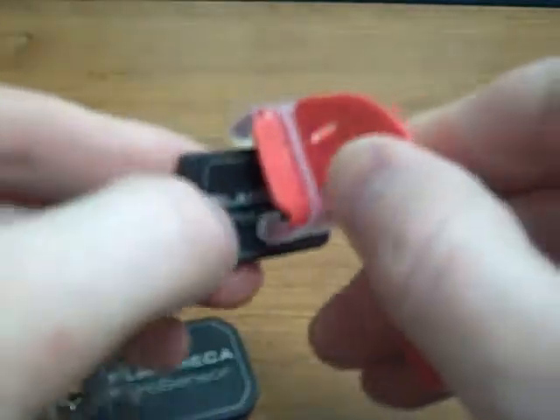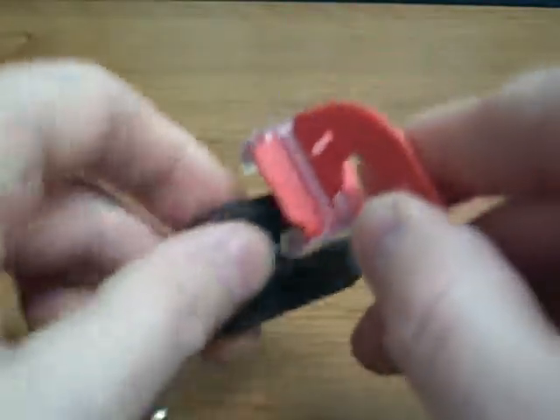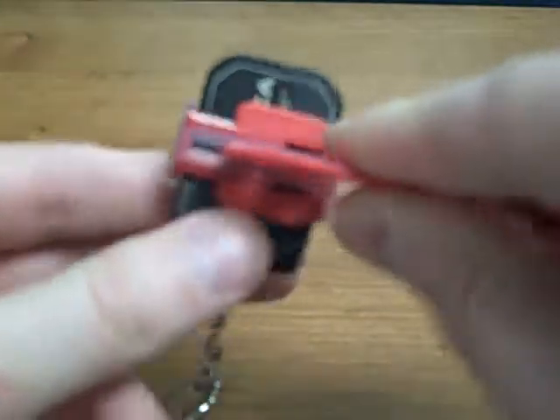For the size 1 and size 2 sensors, you would just want to use the vertical bite block for holding the sensor in the vertical orientation. There you can see it with the size 1, and here's the size 2 in a vertical bite wing.